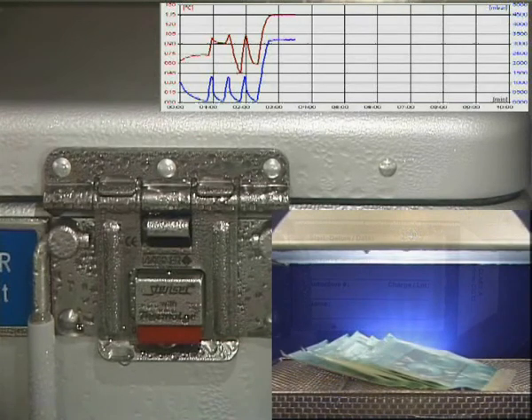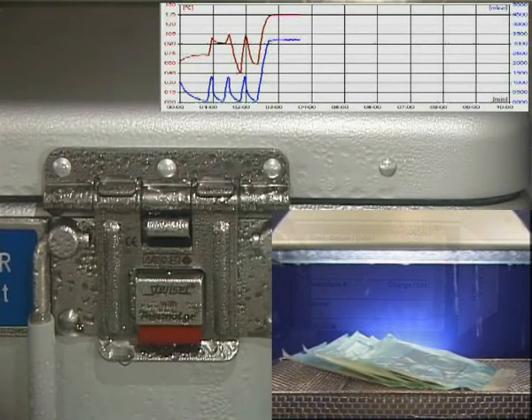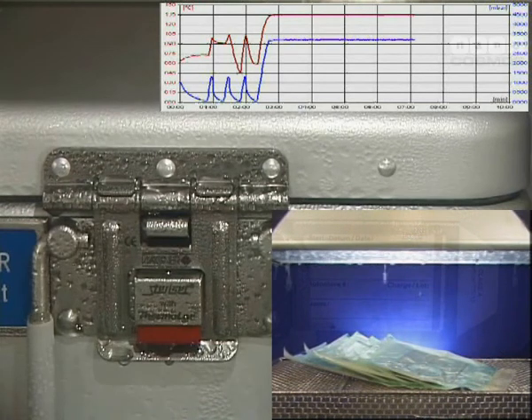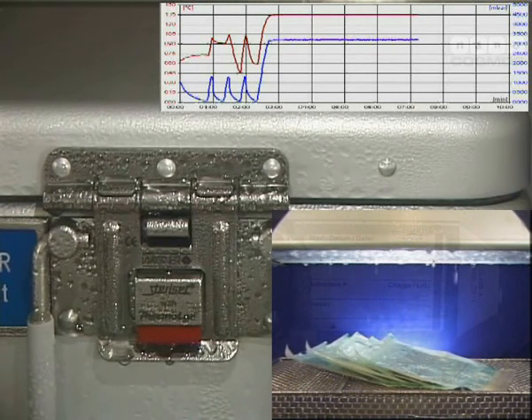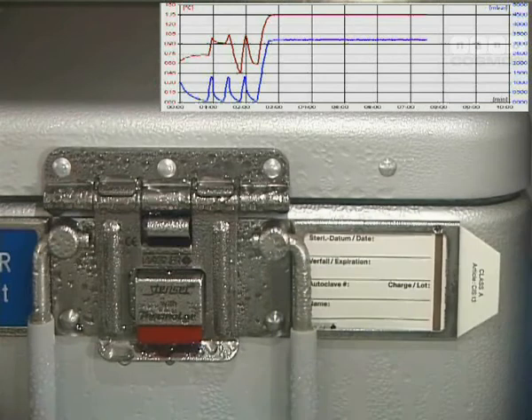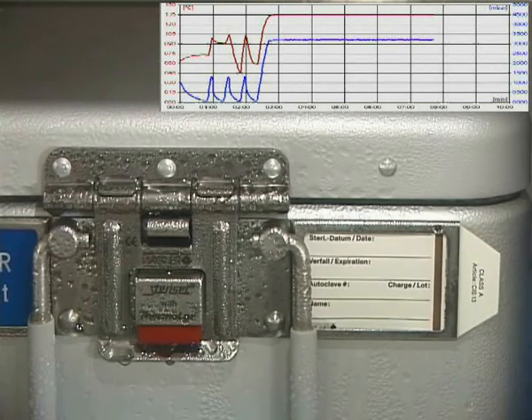The negative aspect is everything is wet, like also your pouches inside the container, outside of the container all is wet. And we accelerated the cycle now to have a dry pack for storage reasons. Remaining humidity would be a risk for maintaining sterility.